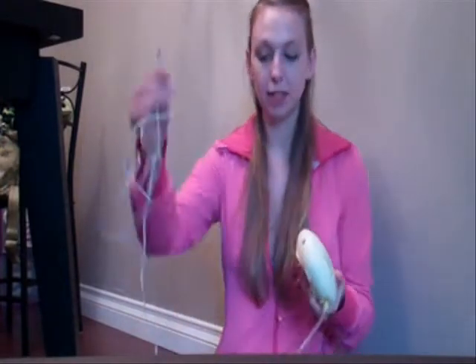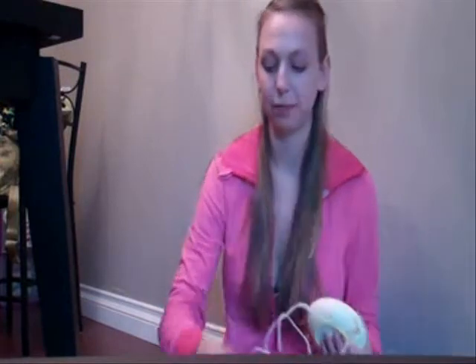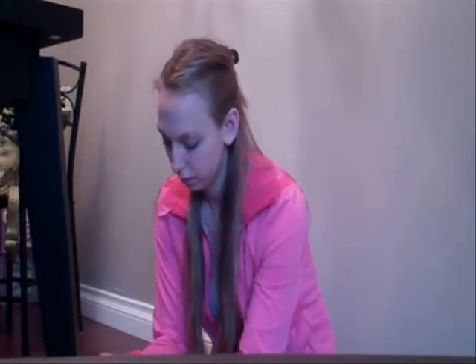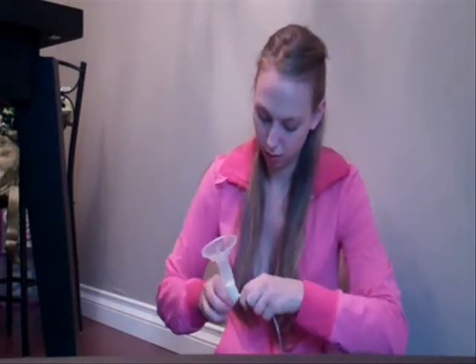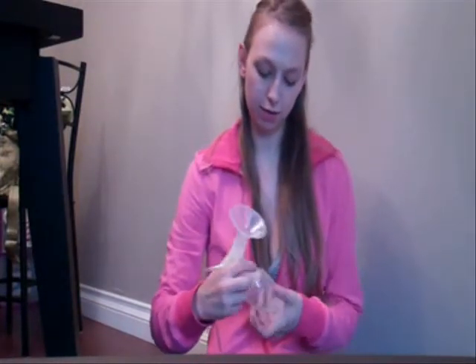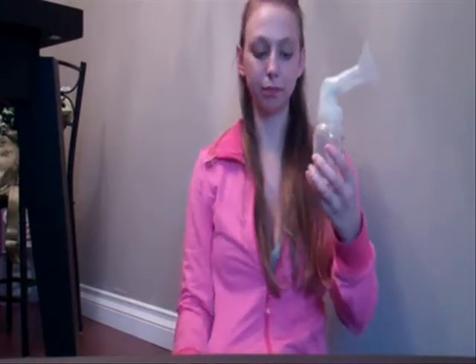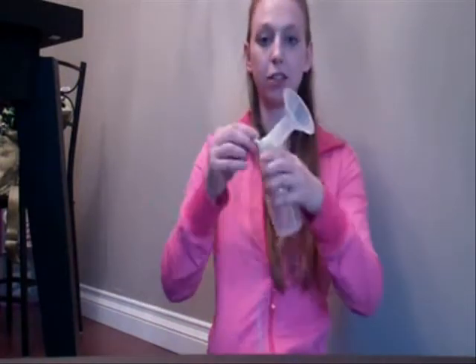It's really easy to match it up. There's a piece that looks like a triangle here and an opening that looks like a triangle — you fit that in there just like that. This piece for the wall plug-in goes in this side, this piece goes into the wall, and that piece goes in there. And this is the Medela bottle, so I'm just going to screw that in there. So that's how it looks — all connected.